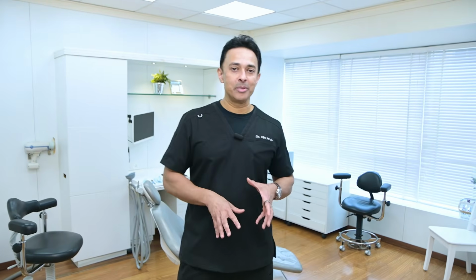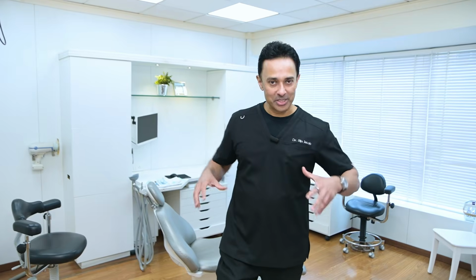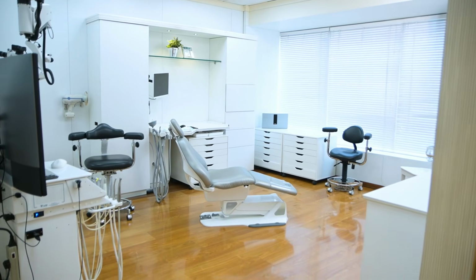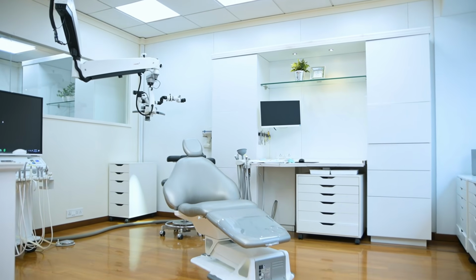So I thought this video will go through some of the design elements and also some of the components, why they are in a certain way, so as to differentiate our practice from many practices out there. So let me take you through one by one. The first thing you notice when you see an operatory like this is that it seems way more open than a lot of practices out there. Why is it that way?